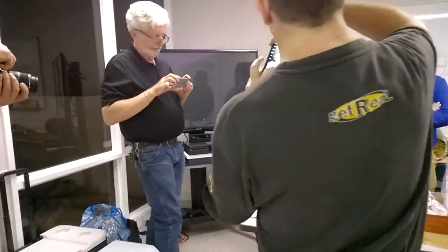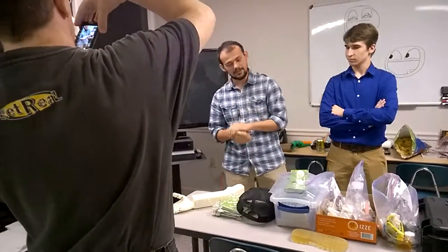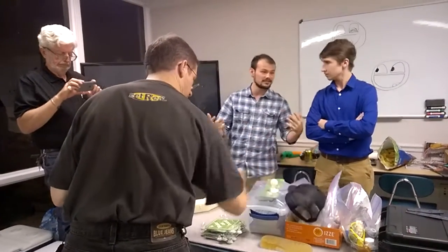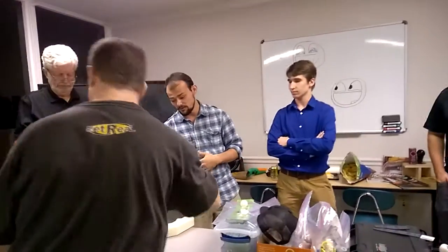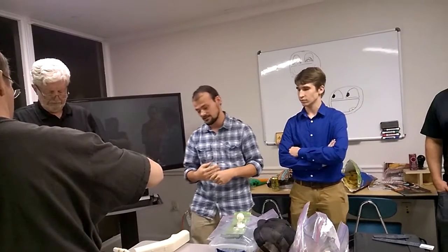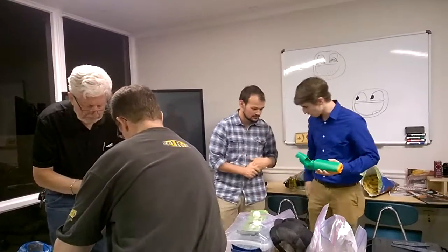A lot of the early prototyping — we would also use subtractive manufacturing processes to fix some of the mistakes or things that didn't come out just right. We agree with some of the things you guys said earlier about form meeting function. While we were very pleased with the flexi hand designed by Steve Wood from Gyrobot UK, we were not so comfortable with the forearm and padding. It kind of looks like Hellboy's arm — not really aesthetically perfect. So we started working on new designs.